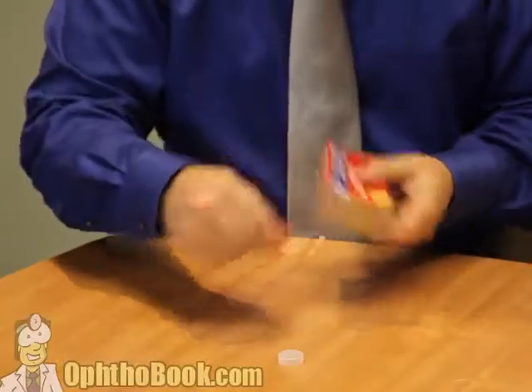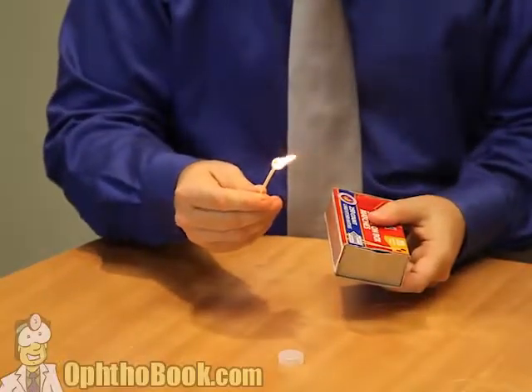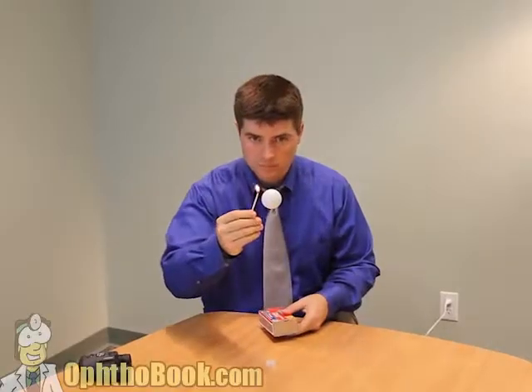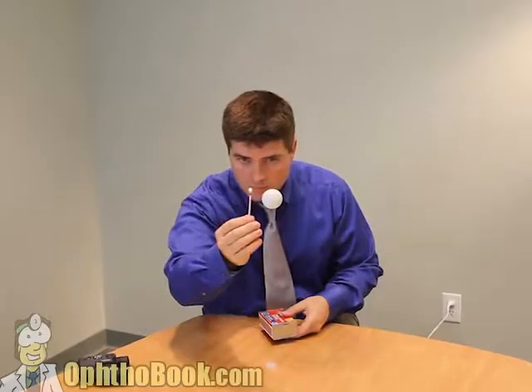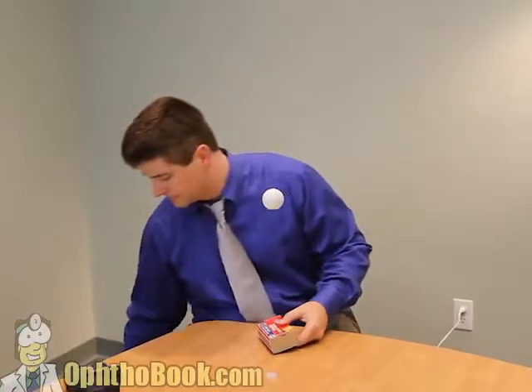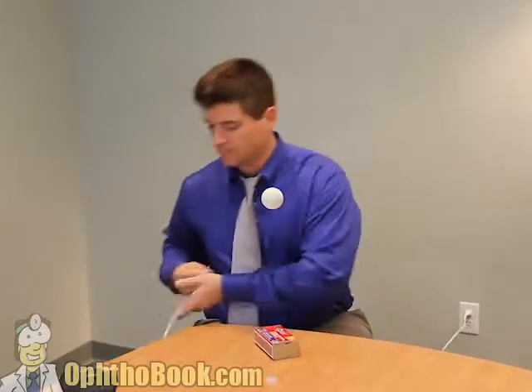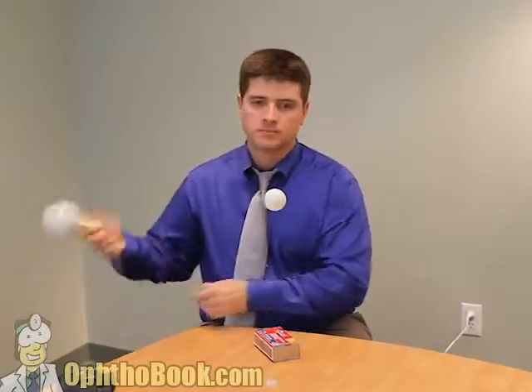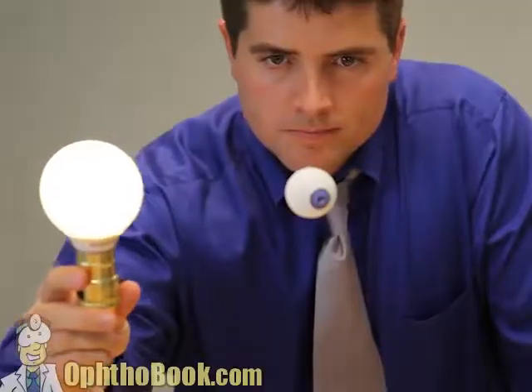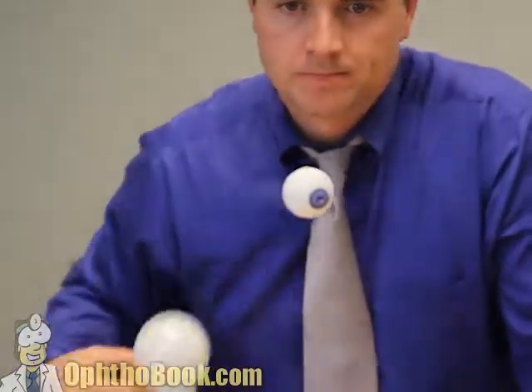Now we need a light source. Early microscopes used sunlight or even a candle flame to look at the eye, but it's just not enough light. And as we know, the eye is sensitive to flame. So with the invention of electricity and the light bulb, we improve our design and start using a light bulb to see what we're doing.